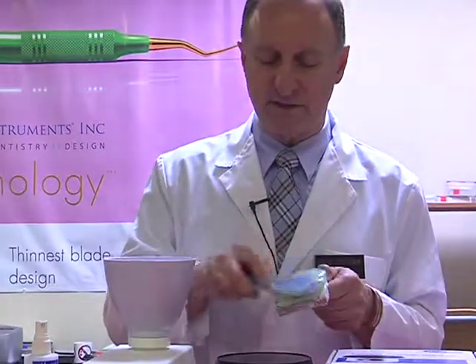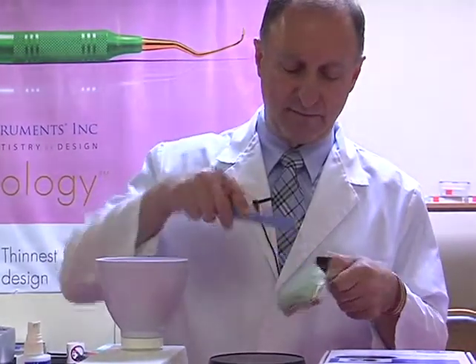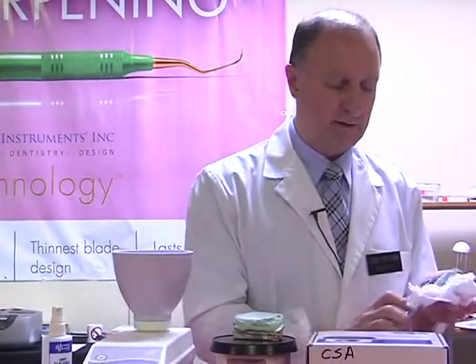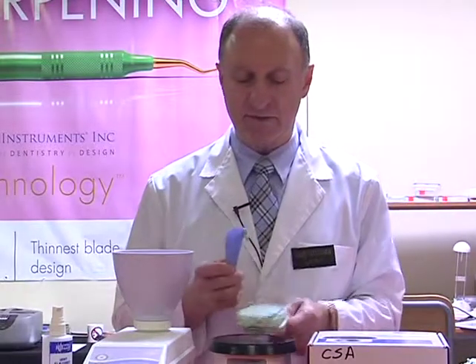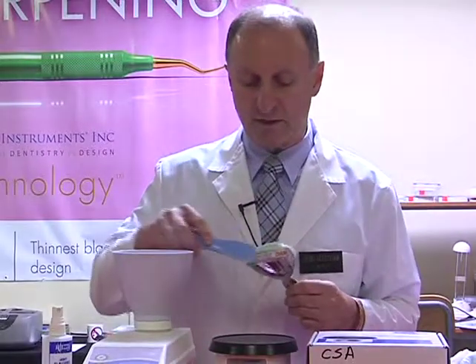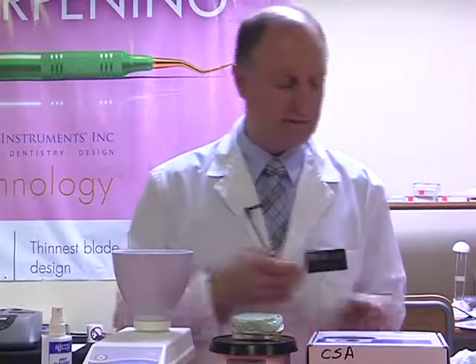But I'm just flattening the surface over here, and I don't have to spend a lot of time on this. Trimming off a little bit of excess where necessary. As I say again, this just literally will save us time later on when we are on a model trimmer. So it just reduces that period of time that we would normally spend on the model trimmer.